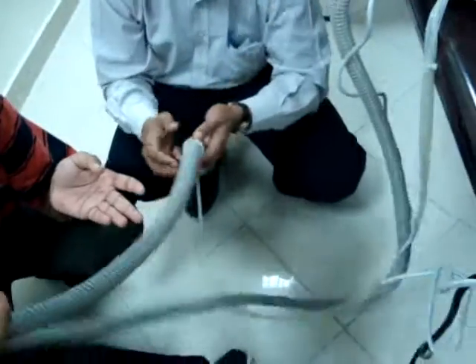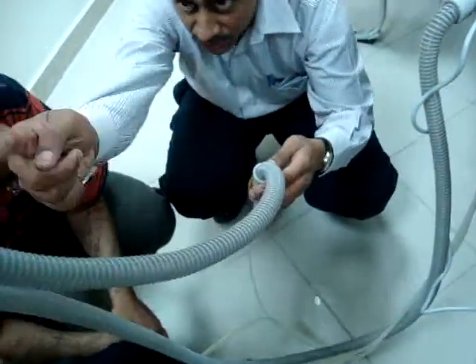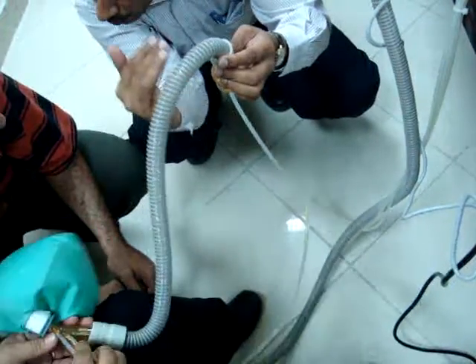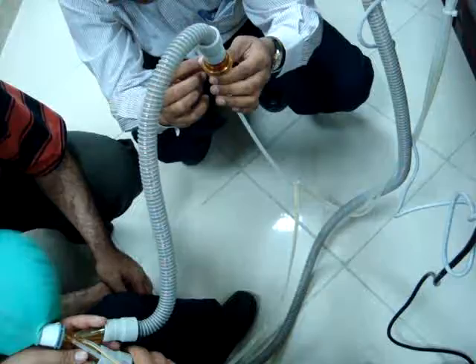Depends on the output, there is a membrane movement. So this one is a spring. Why? I'll tell you. This tube is giving the output. The return air, based on that, the membrane is moving with more load or less load. The spring moves accordingly.